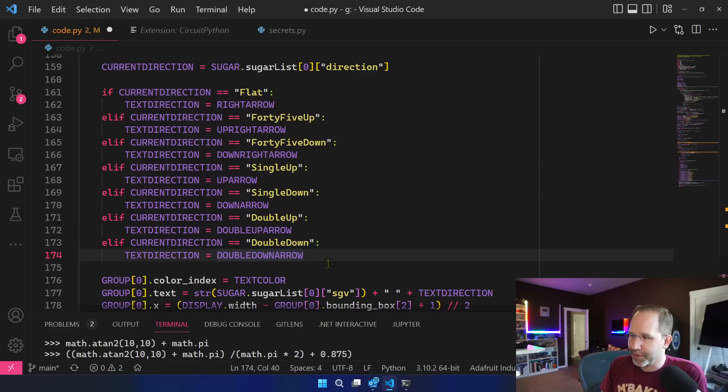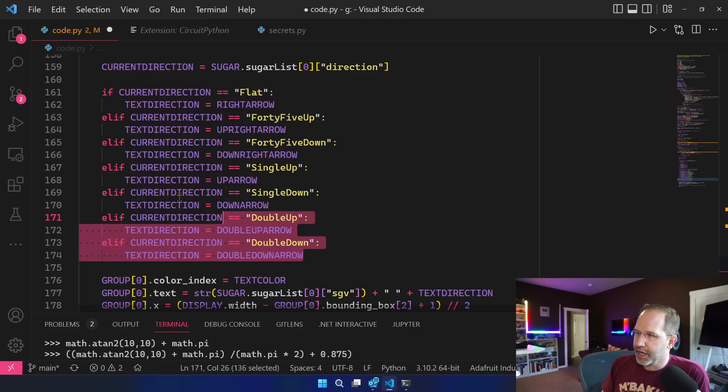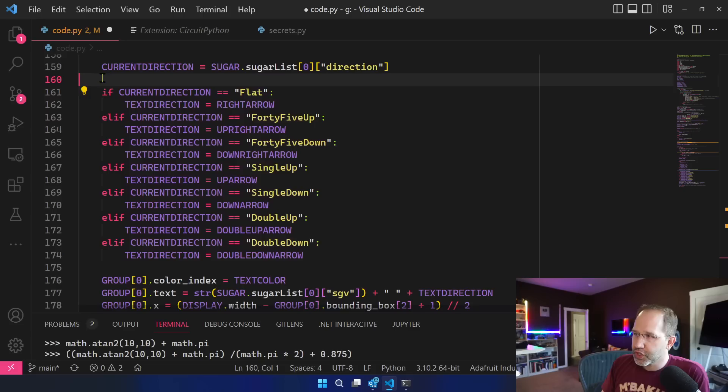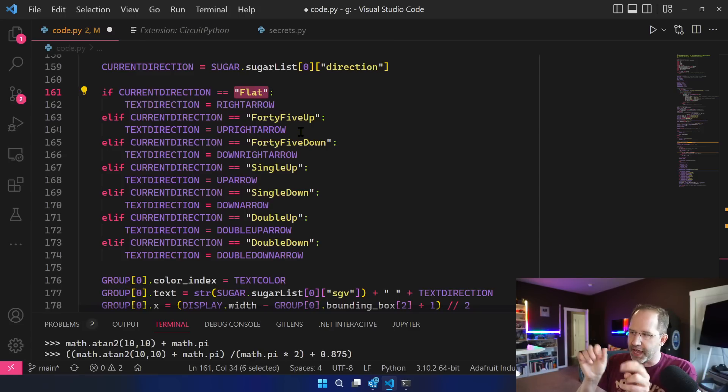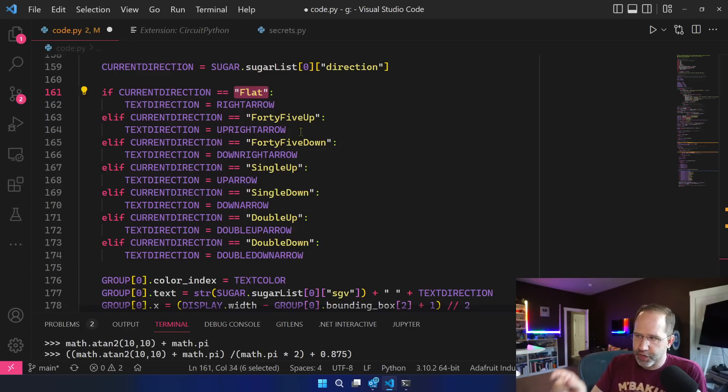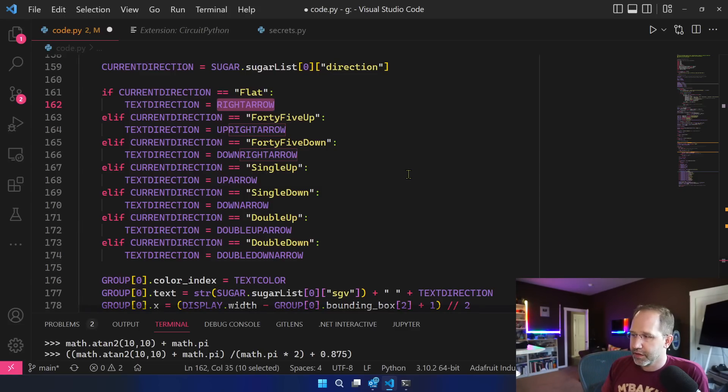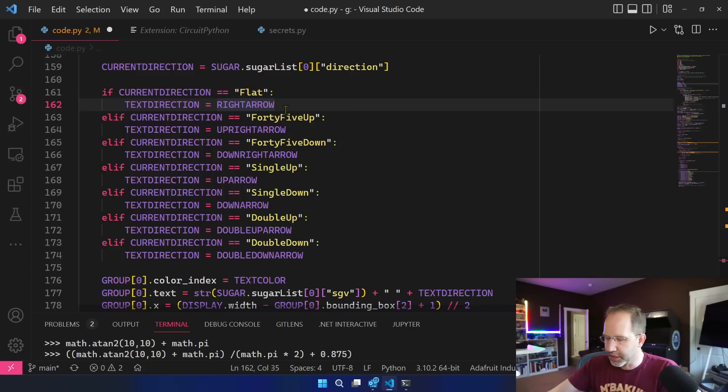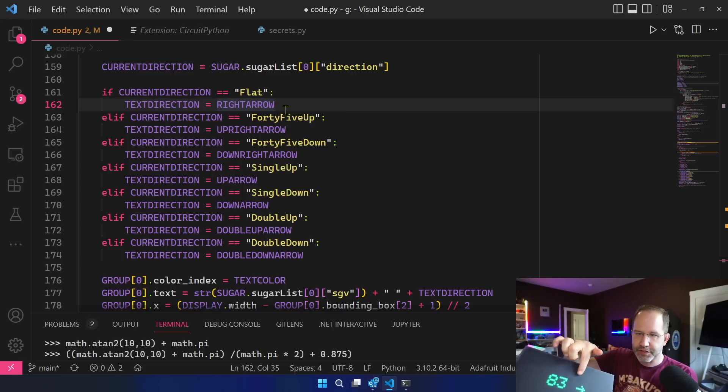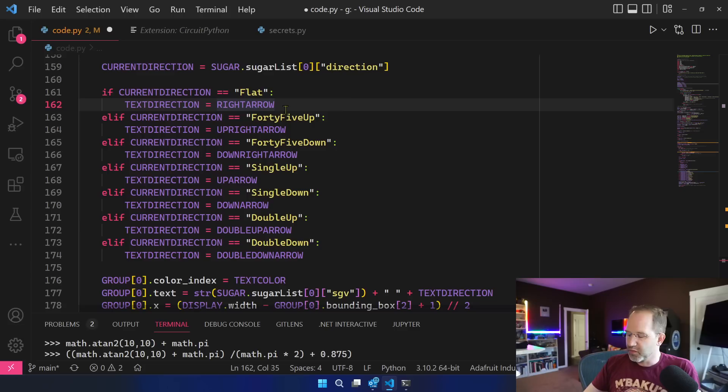And then I set up my, this is cheesy again. I want to show you all bad code and good code because it's like well what do we do? I could make a transformation function. I could make a switch statement. Right now I basically have this enumeration where I want to map the text, the text flat or the text 45 up. It's literally a string in the JSON and I want to map it to right arrow, up arrow, double up, double down things like that. So I'm trying to map strings to glyphs where those glyphs are like this. So the text flat came back from the server and I turned it into a right arrow. What's the right way to do that? We don't know.